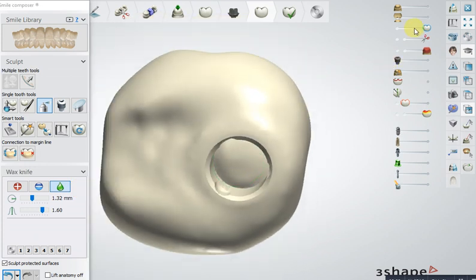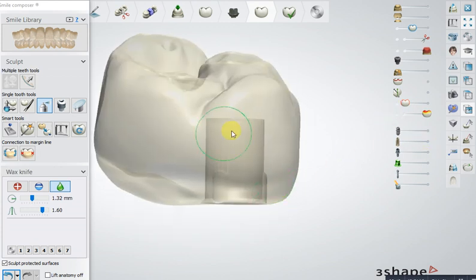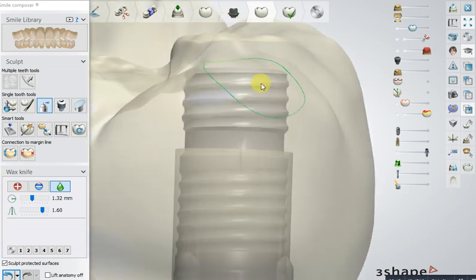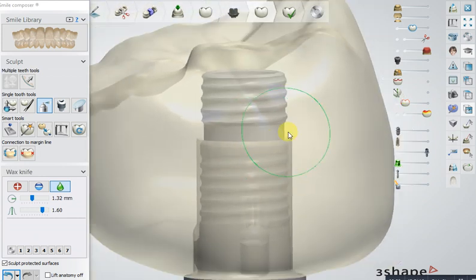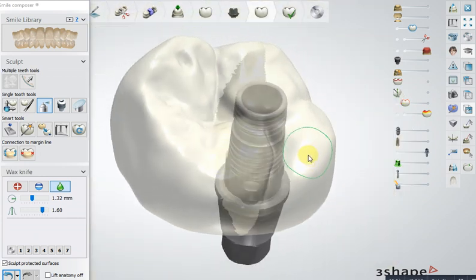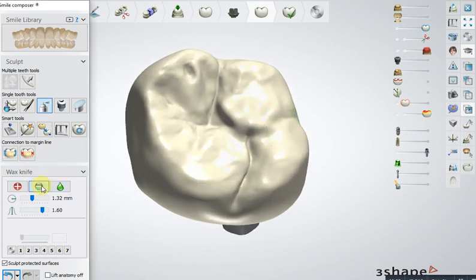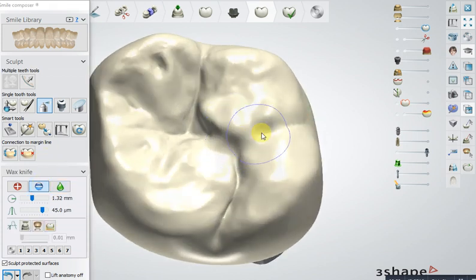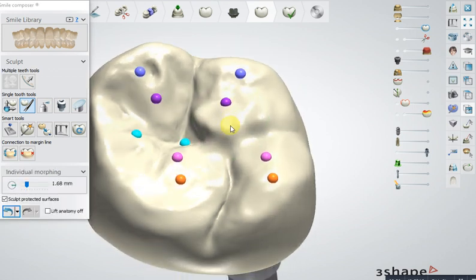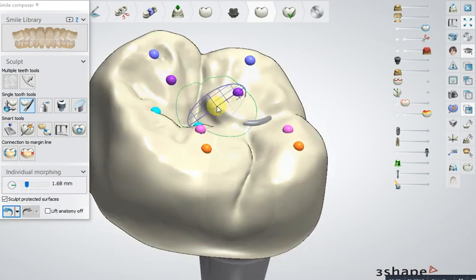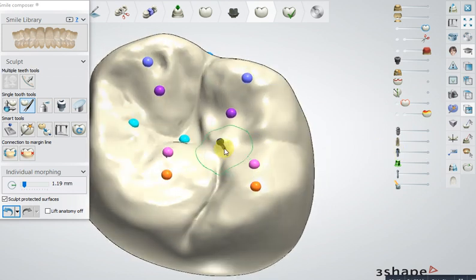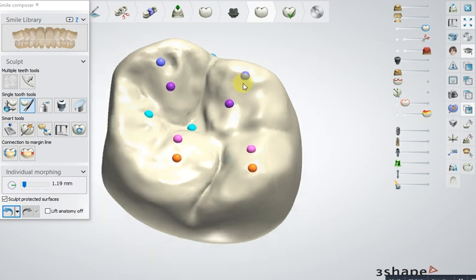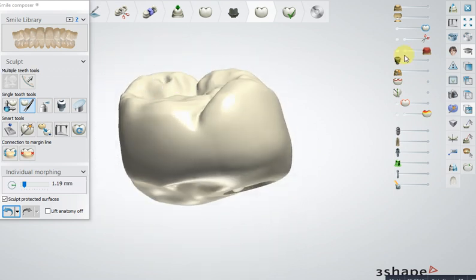You can see with the guide here — even though the type is tall, our boundary is here. You can see here. After that you can make your anatomy, like what we did, and now you change your anatomy. Whatever you want to do, do it here, because our boundary is here — you can see.